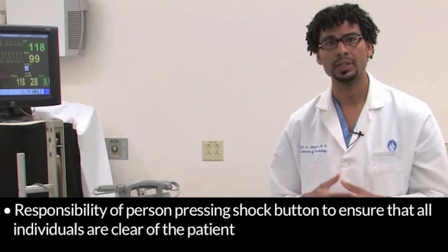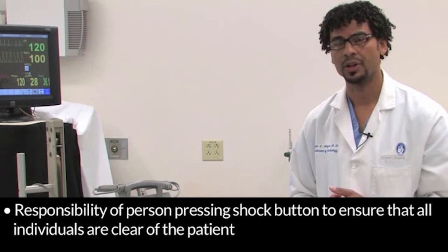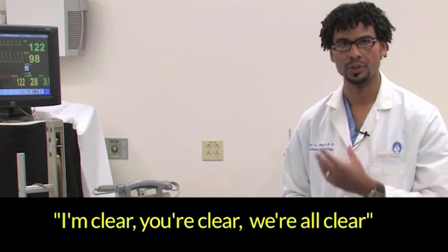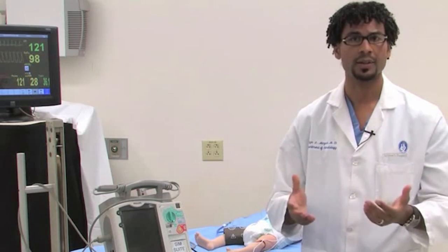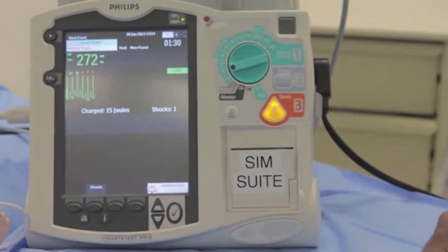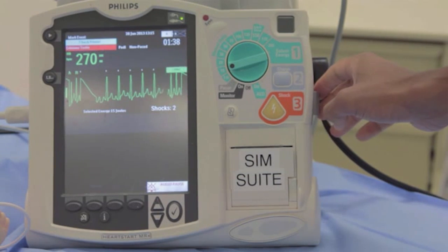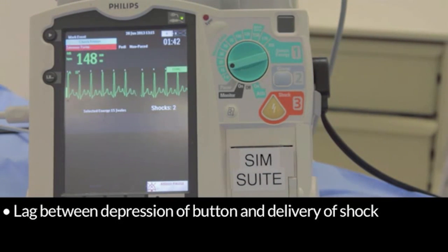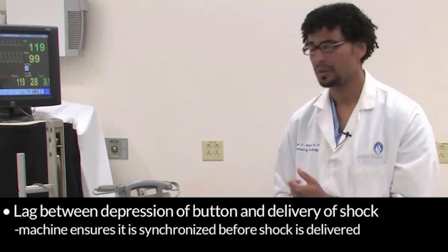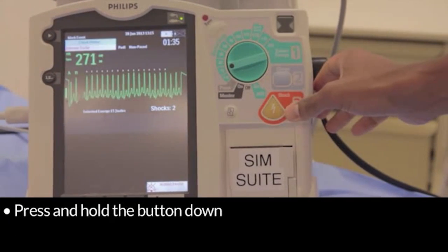Before delivering the shock, it is the responsibility of whoever is going to press that button to ensure that he or she and all other assistants at the resuscitation are clear of the patient. The algorithm we use here at Children's involves the person delivering the shock saying, 'I'm clear, you're clear, we're all clear.' That gives you time to ask the question but also look around to make sure no one is in contact with the patient. Once you've ascertained that everyone is clear, you deliver the shock by depressing the button. It's important to note that in cardioversions there's typically a lag between the depression of the button and the delivery of the shock, because the machine makes sure it's synchronized before a shock is delivered. Press and hold the button down when you cardiovert a patient to deliver the shock.